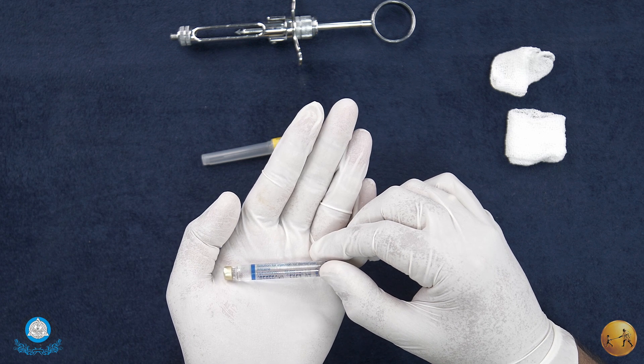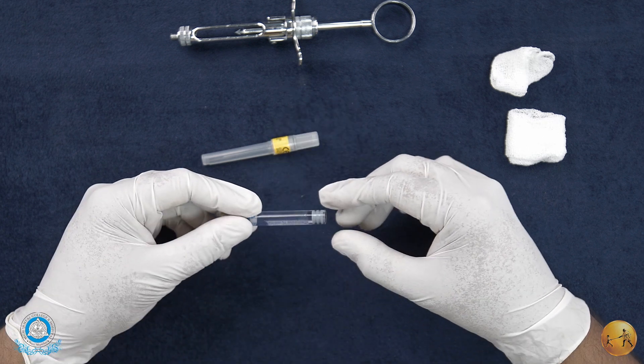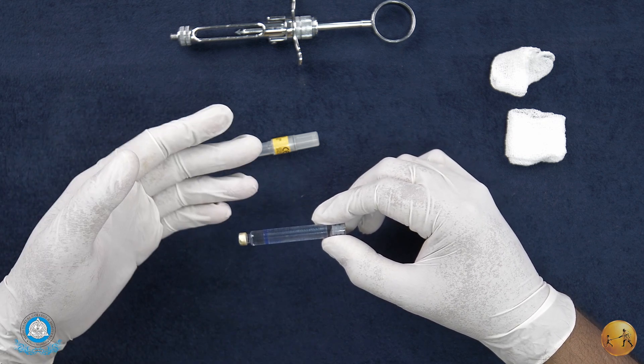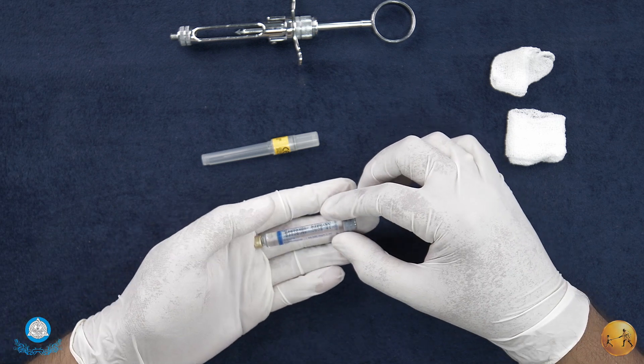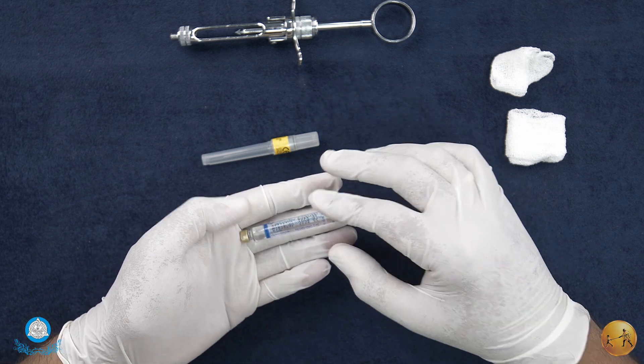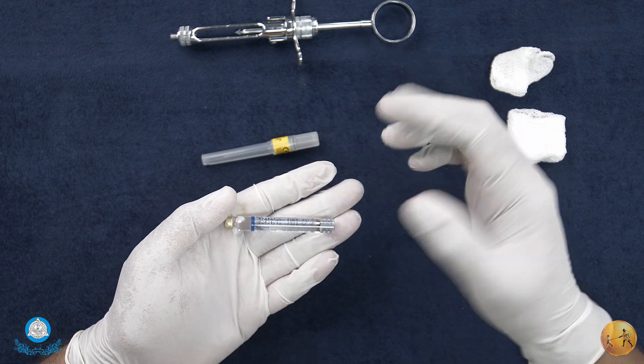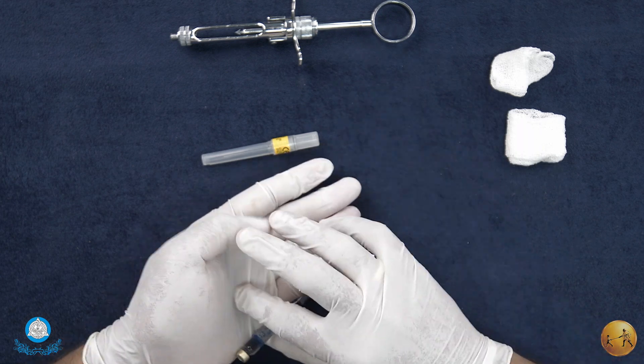To talk more in detail about the actual use of the cartridge - note that a cartridge is generally stored at room temperature, though certain clinicians prefer to keep them at a lower temperature.